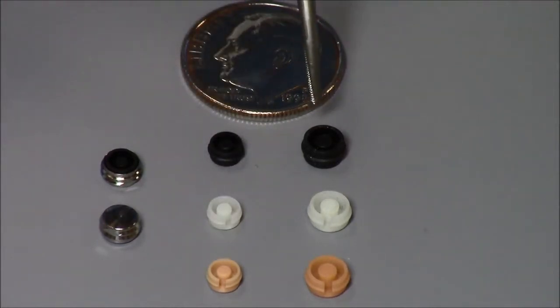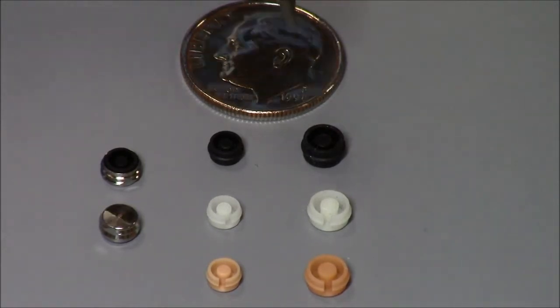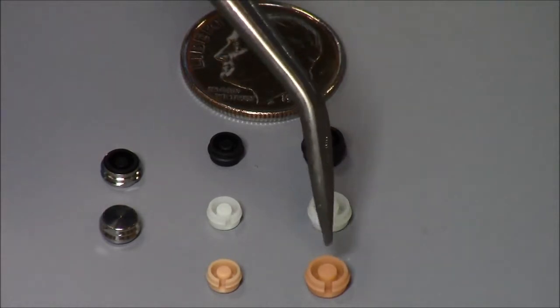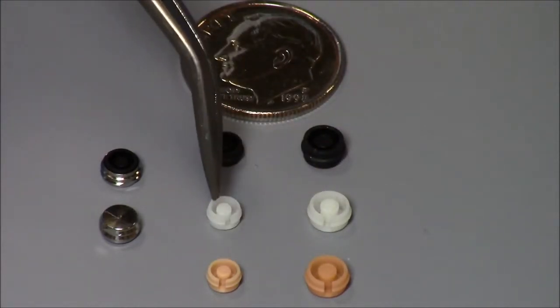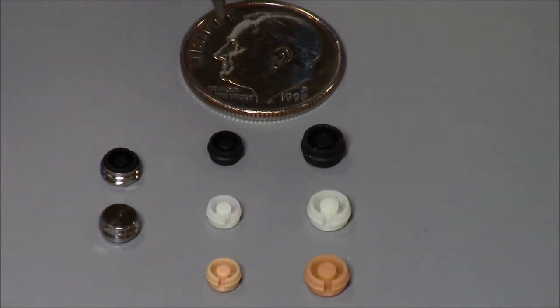You'll notice that the black males have no opening in the side wall because when we process them in the denture, we don't want any acrylic or composite to get in against the female. However, there is a small slot in the side wall of all of the final males. This gives the nylon a little flexibility, so it's easier to snap in place.